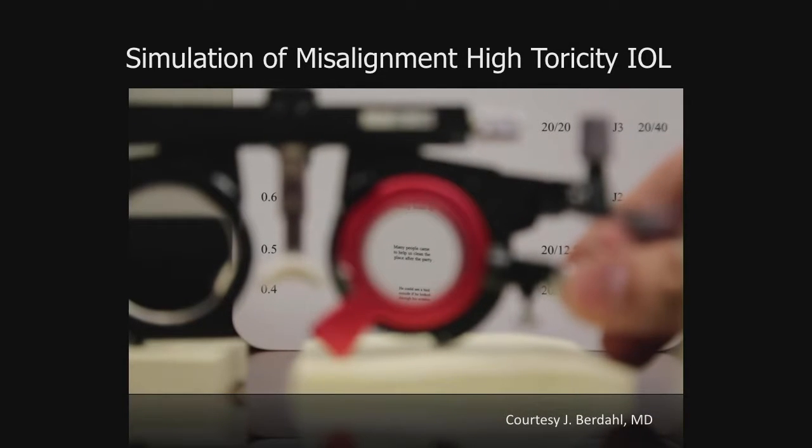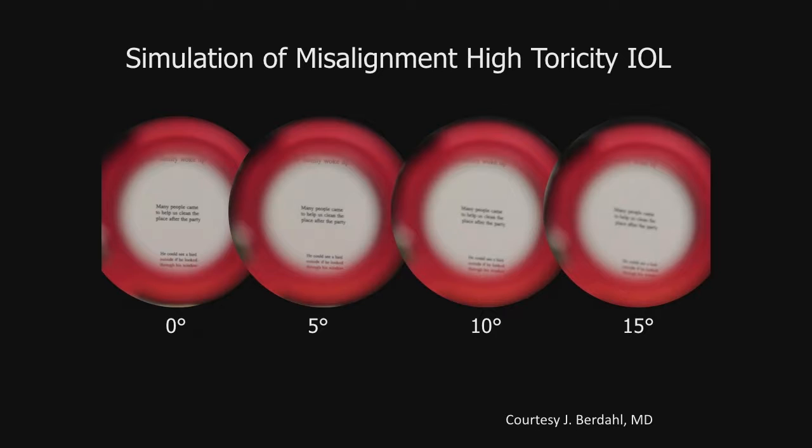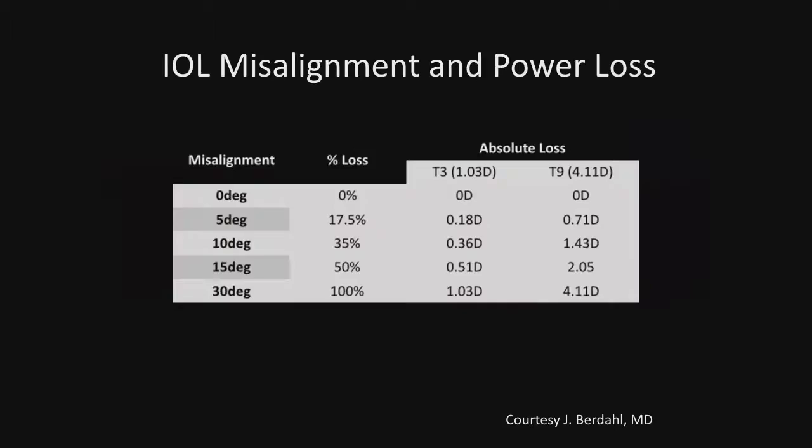So why is this important? Because it affects how we see, as evidenced by a loose lens here in a trial frame. With a high toricity, we can just twist it and we can see the resulting image quality degradation. And obviously, the more we twist, the more we degrade. And you'll hear these subtle complaints about a slanting of vision, a slanting of light, that is going to clue you into thinking a little bit about residual astigmatism.